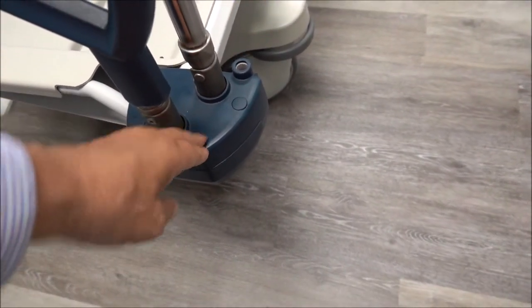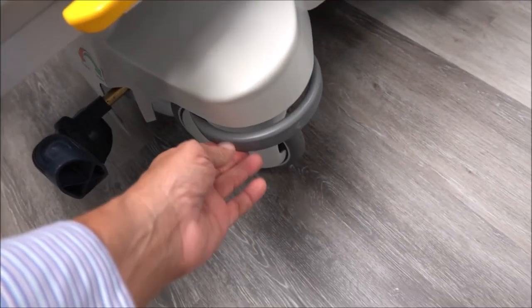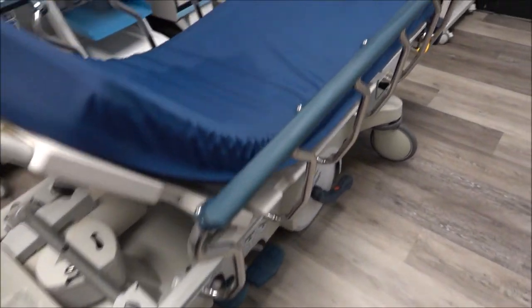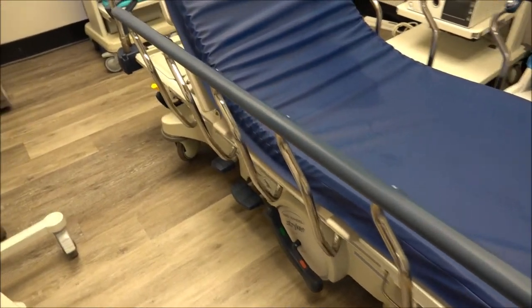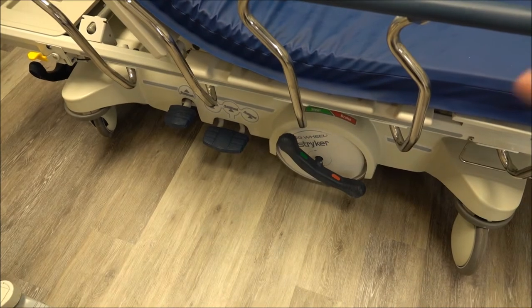There are also real nice, big, thick blue bumpers. The brakes are right down here — you clamp down, and those are your brakes. When we recertify them, we basically disassemble the entire stretcher. We take all the brake units off — you've got them on all four wheels — and we re-dip those, so when you get them, they're in brand new condition. The entire item is disassembled, repainted. You can see the whole base has been cleaned and painted.